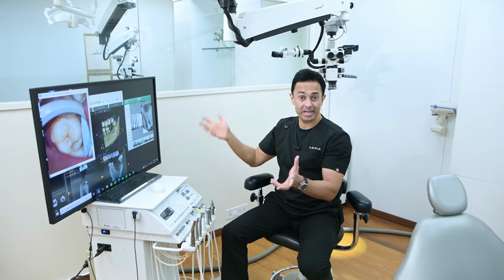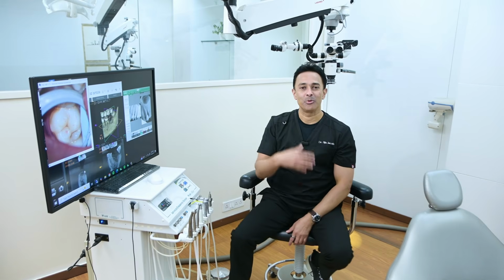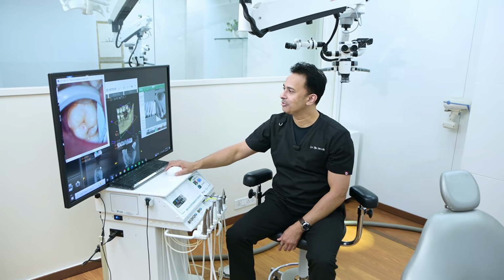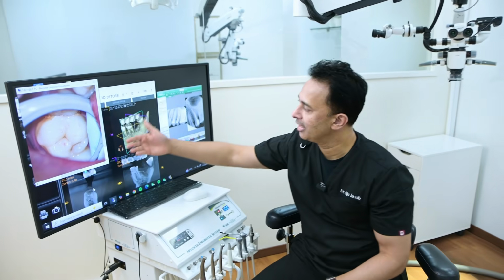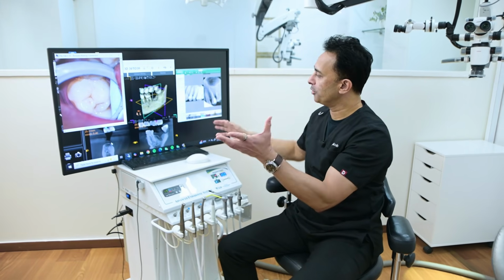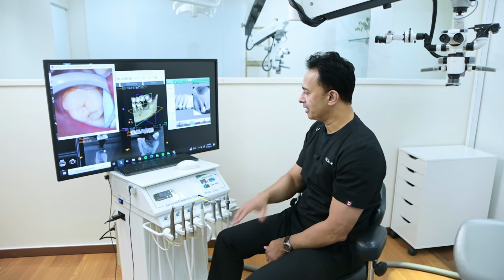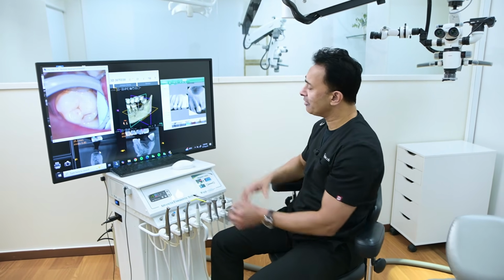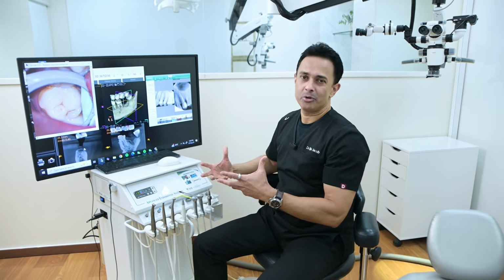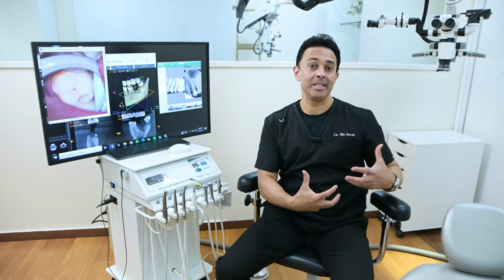Again, the monitor has a lot of flexibility when it comes to cart-based systems. You can change the size of the monitor depending on your preference. What we do is we took the largest monitor available because you have the option of opening multiple windows. So if you see now here, you have the microscope pictures, you have a cone beam CT here, and then you have a radiograph software here. So depending on which one you want, you can maximize it and then work on it and then have a discussion with the patient as we showed in the earlier sequence. So the cart is a very, very important component. It helps us put everything in one place and then make it very easy for us to document, reduce the clutter, give this sort of minimalistic look, and also facilitate patient discussions.